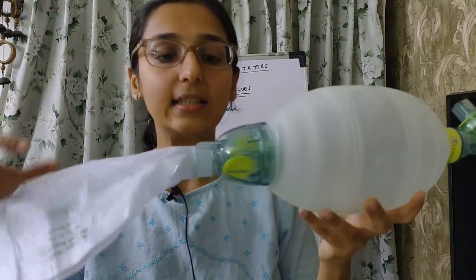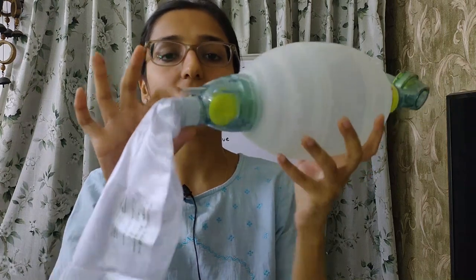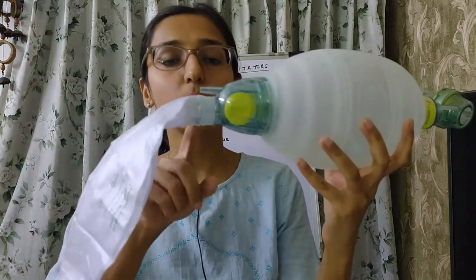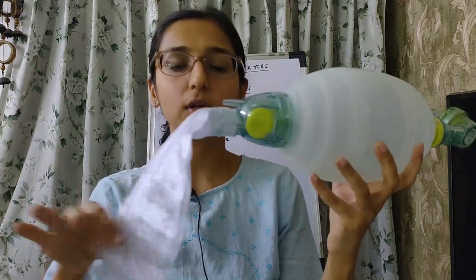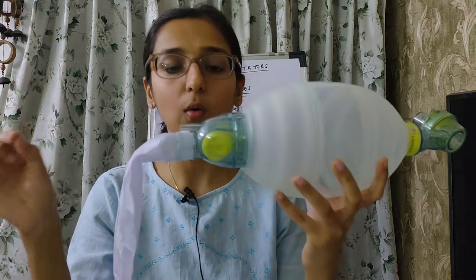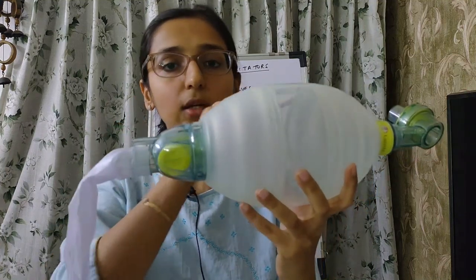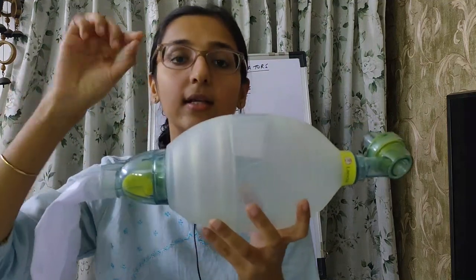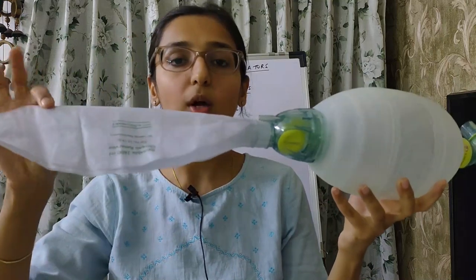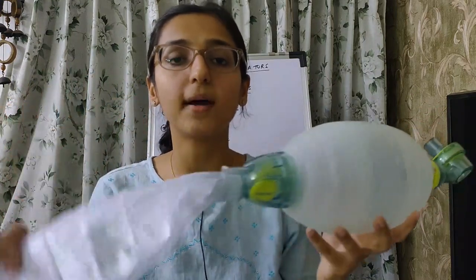The respirable gas inlet has two ports — a small bore nipple, which is attached to the oxygen tubing, and a wide bore port which is attached to the reservoir bag or left open to the atmosphere. Oxygen enters through the small bore nipple into the bag. All excess oxygen moves into the reservoir bag, inflating it. By attaching the reservoir bag, you can provide a higher FiO₂ to the patient — even up to 100% FiO₂.